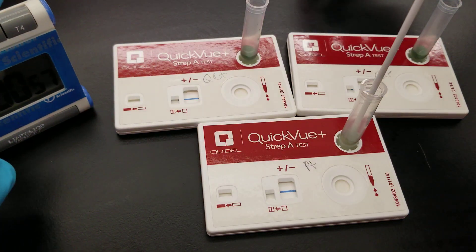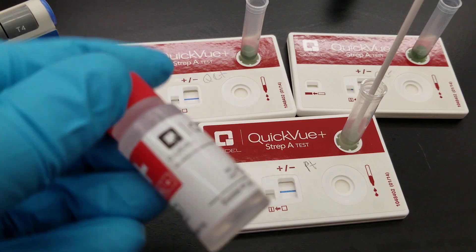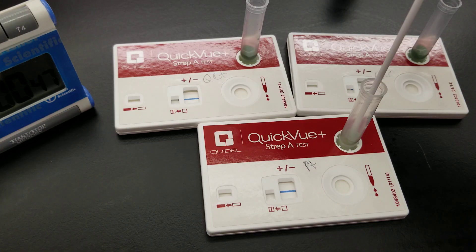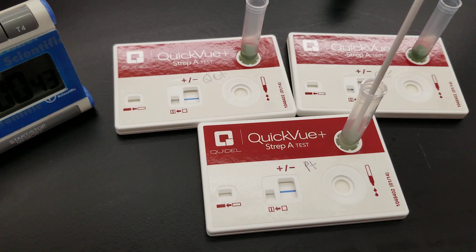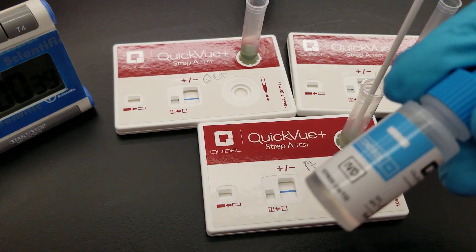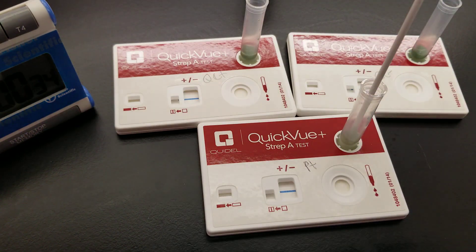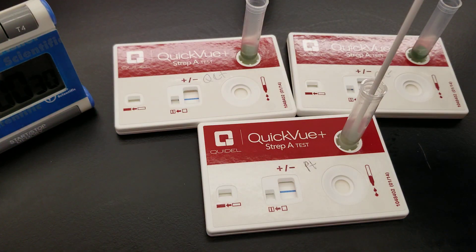Now we're going to add the QC controls. Make sure you invert the bottle before you use it. This is positive QC — one vertical drop is all you need. We got one drop there. Now negative QC — inverting — and one vertical drop there too.